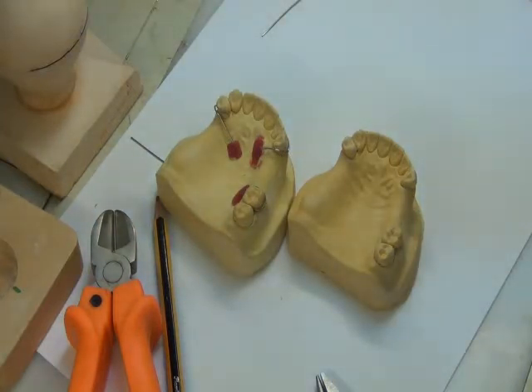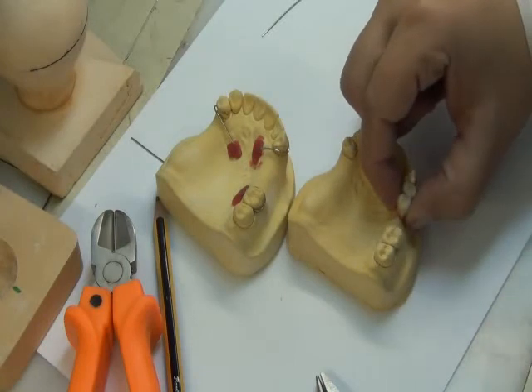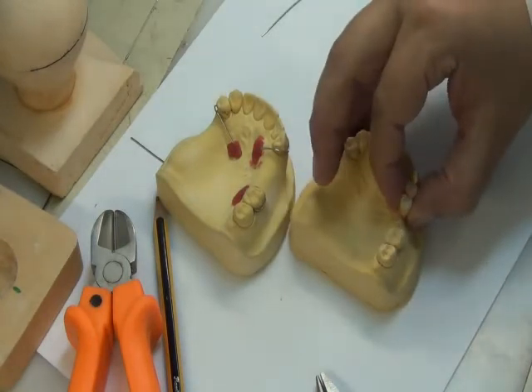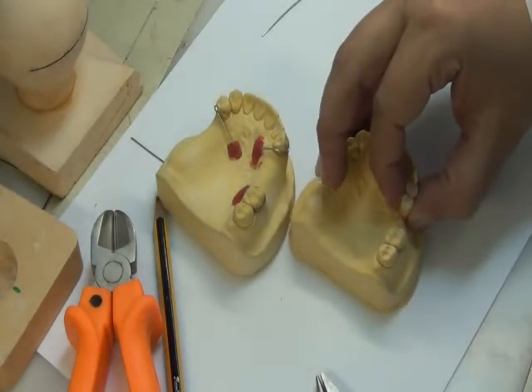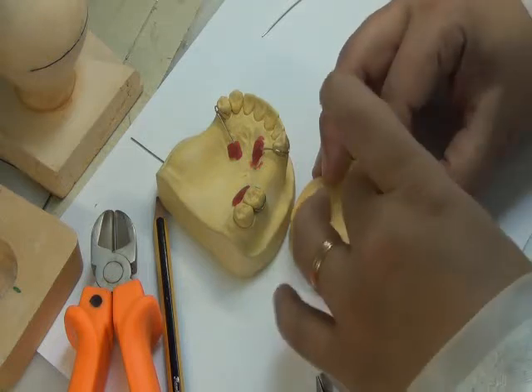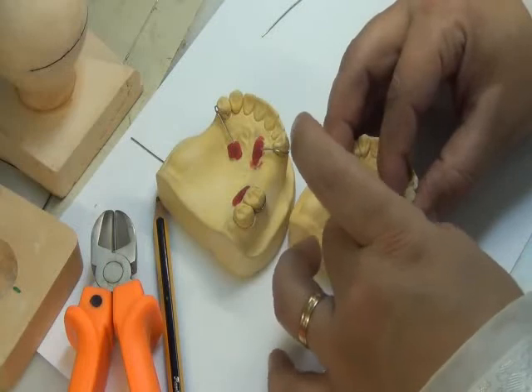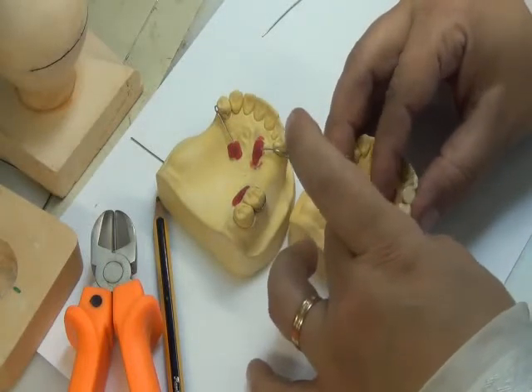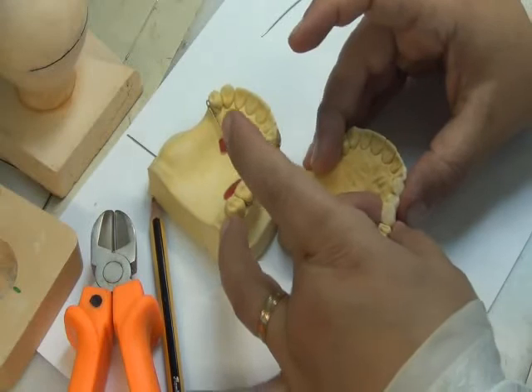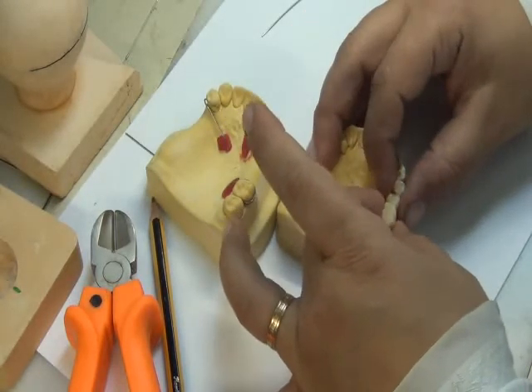When we want to replace teeth, the best RPD or temporary RPD occurs when the teeth I set have the same dimensions. That means when I put teeth in, suppose I'm putting this set of teeth, I need to select a size where after adding all teeth, I have exactly the same size as the bounded saddle. Okay? So the net result of the mesial distal width of these teeth should be equal to the bounded saddle area.